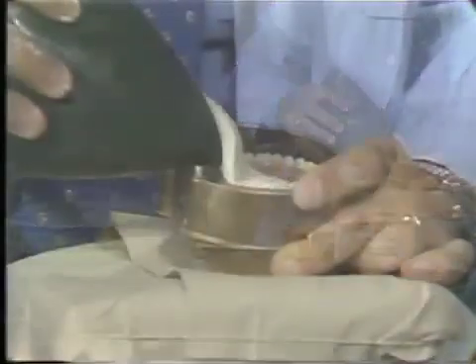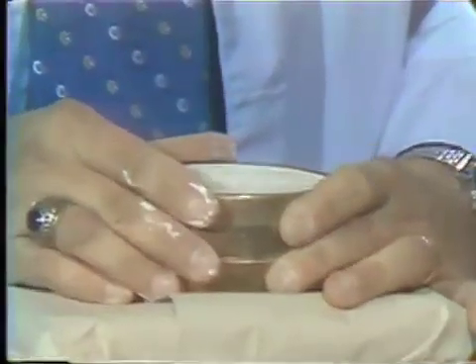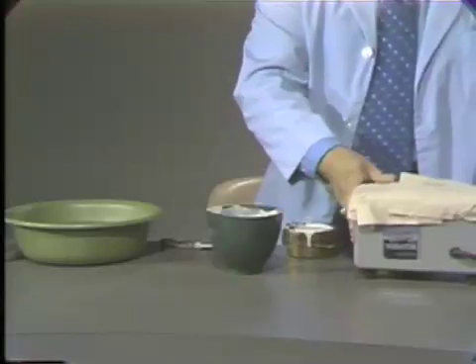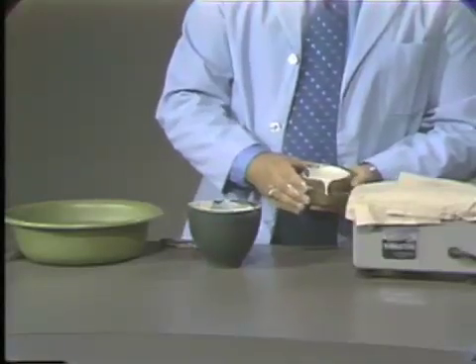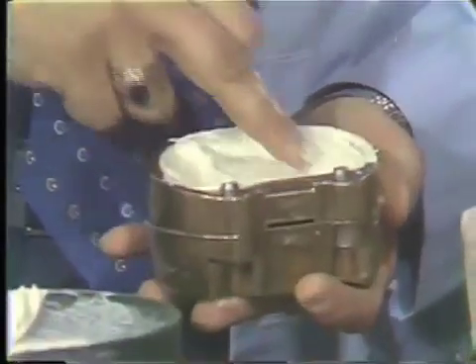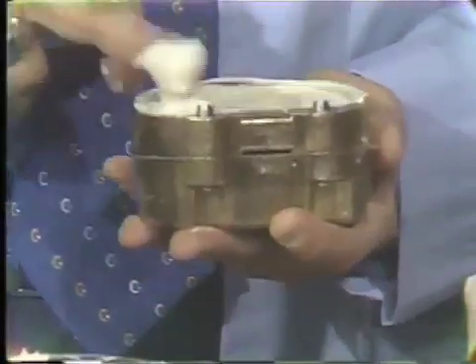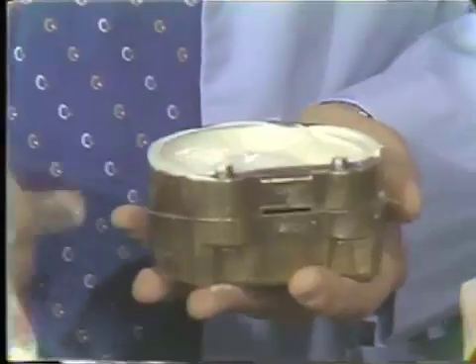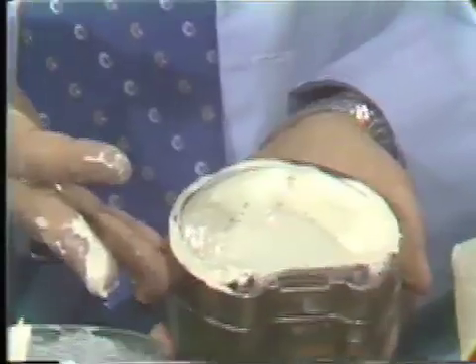I made a large mix, so I can pour both at the same time. It's very important to vibrate this thoroughly, because the small bubbles that would be around the necks of the teeth would be present in the finished denture as bubbles on the denture. After we have made our second pour, we begin to remove some of the material and expose the incisal edges of the teeth. It is difficult to finalize the second pour until the stone and model plaster mixture have begun to reach the initial set. I will go off camera for a few minutes while I complete the second pour.